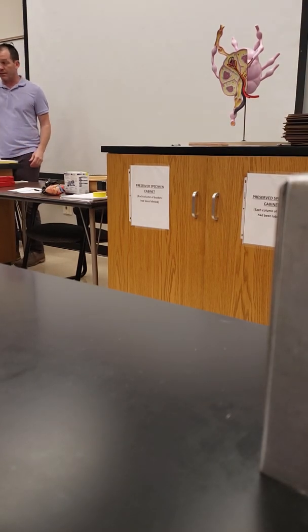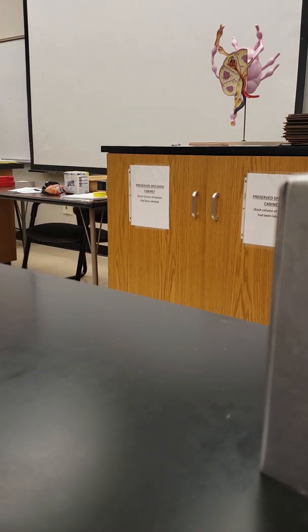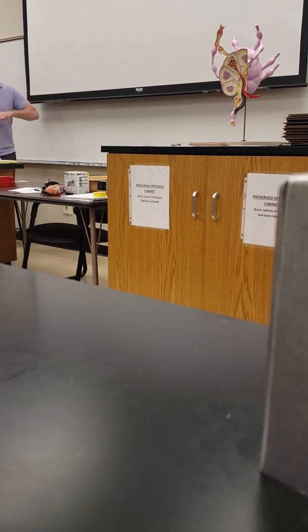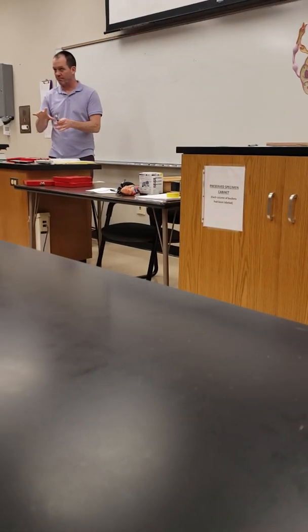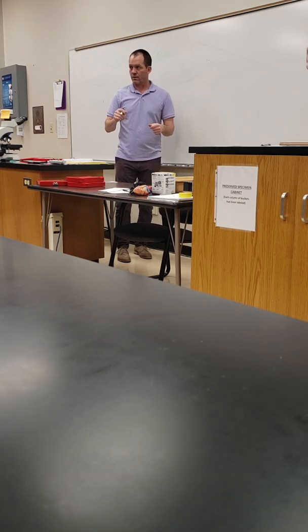Blood typing. This is something that a lot of students get confused about, I think. So I'm wagering that not everybody in here knows exactly what blood typing is all about. So I'm going to give you a quick little tutorial on it. Unless you don't want me to. No, do it? Do it, okay.